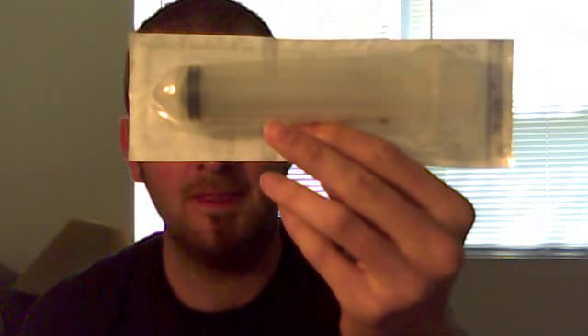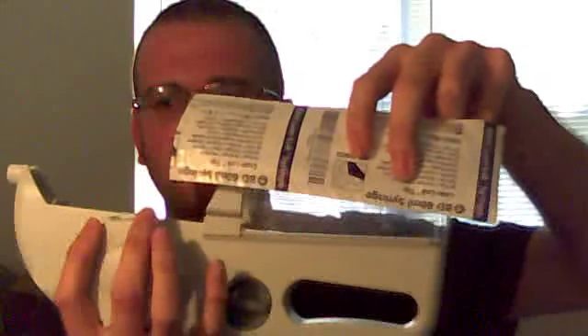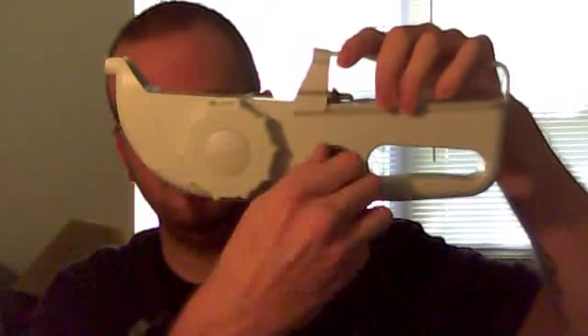After that you fill your syringe up — it's this monster right here. It scared me when I first saw it, I was like holy crap. You load it up and then here's the machine. Load it up, turn it on. It's not even battery operated — it's basically what they call a gravity pump. You wind it up like this and just hit the button. There you go. Not that bad.